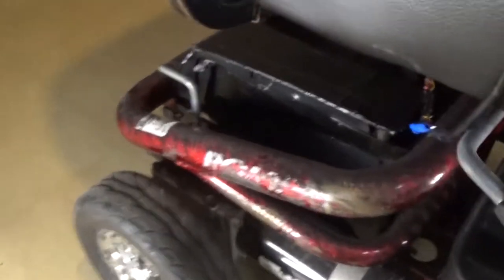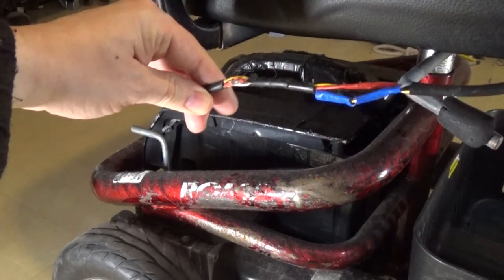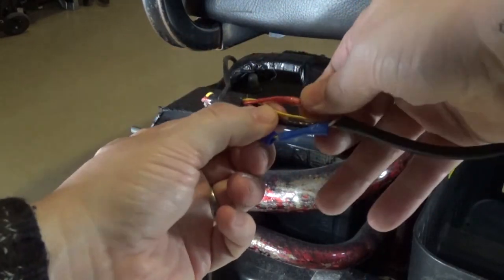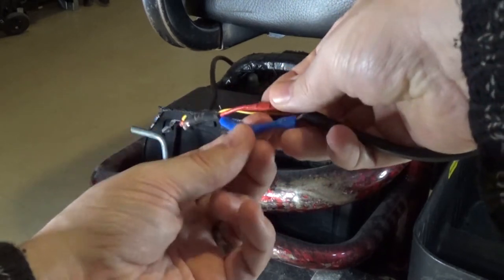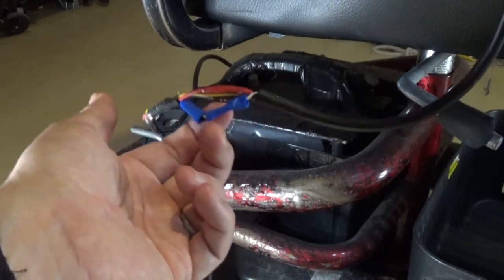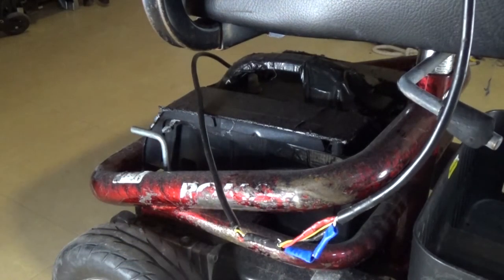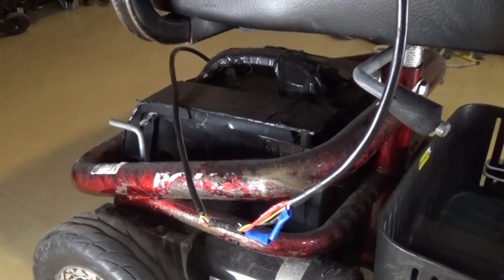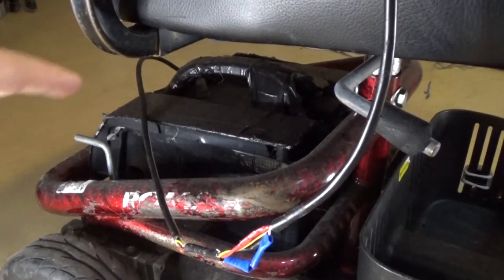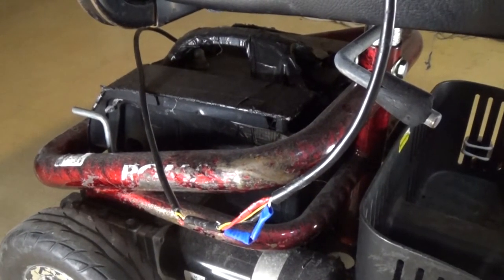The first problem I found was this wire down from the joystick — it was just in tatters. Look, it's all ripped and sheared. I just stuck these two ends together very quickly just to see if it worked at all, and it does work once plugged in, then it holds a charge for a very short space of time. Everything seems to be covered in gaffer tape, or duct tape, depending on what you want to call it.